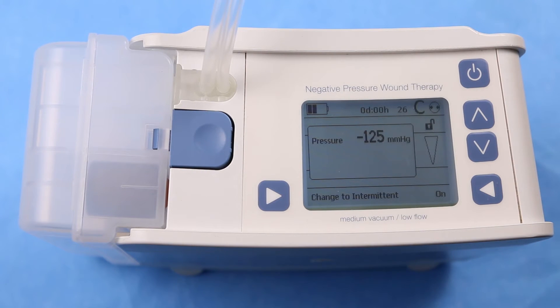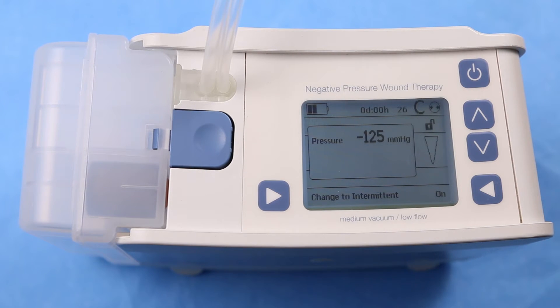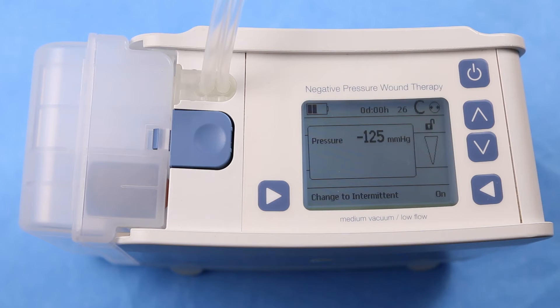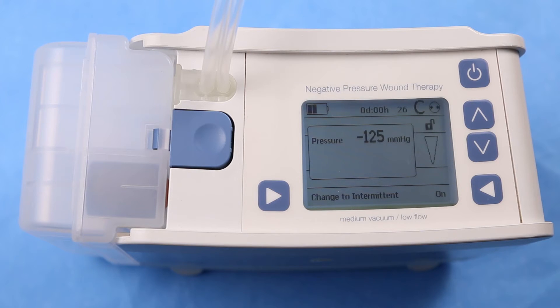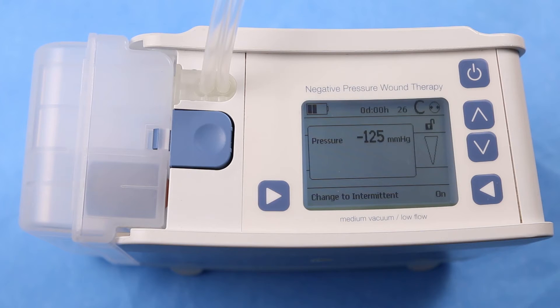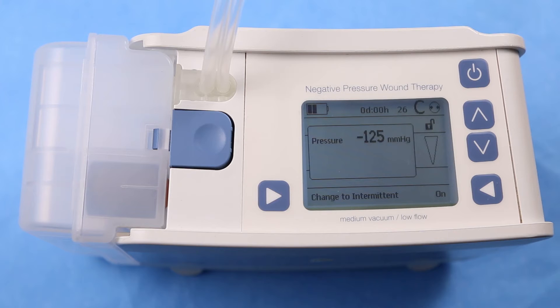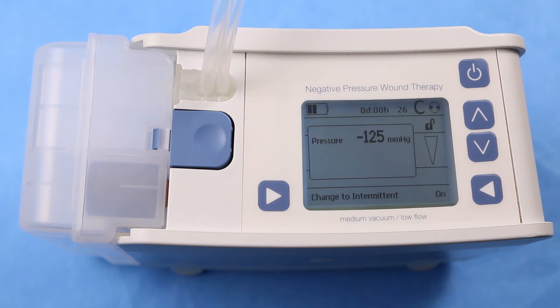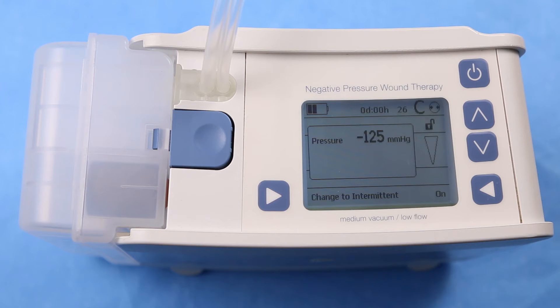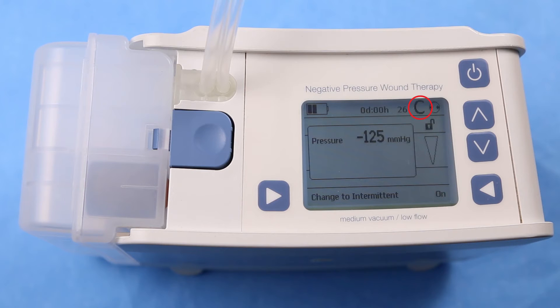The screen will now read 'change to intermittent' or 'change to constant', depending on what the pump was originally set to. The default therapy mode is constant. Constant mode is indicated on the screen with the letter C.